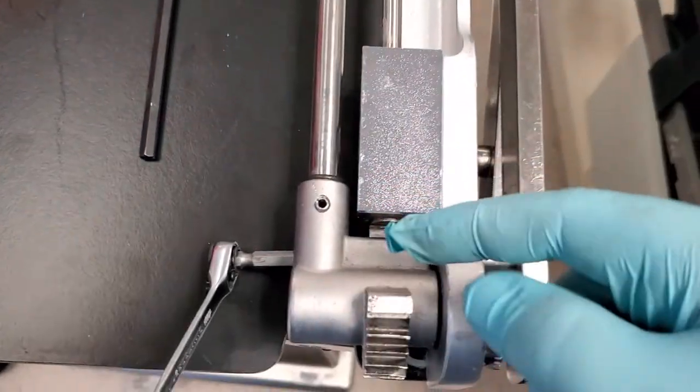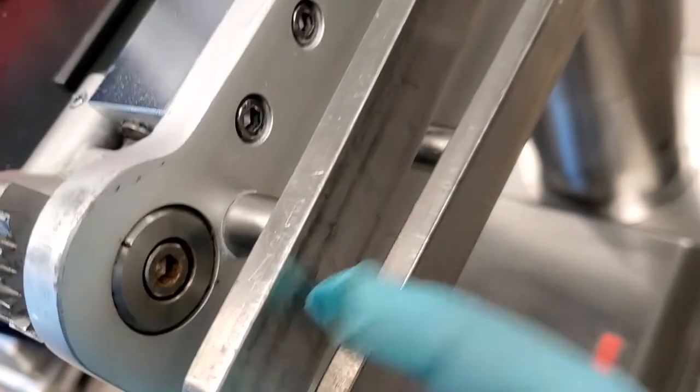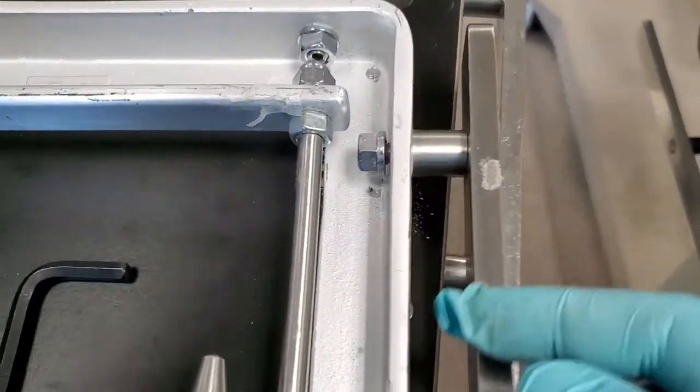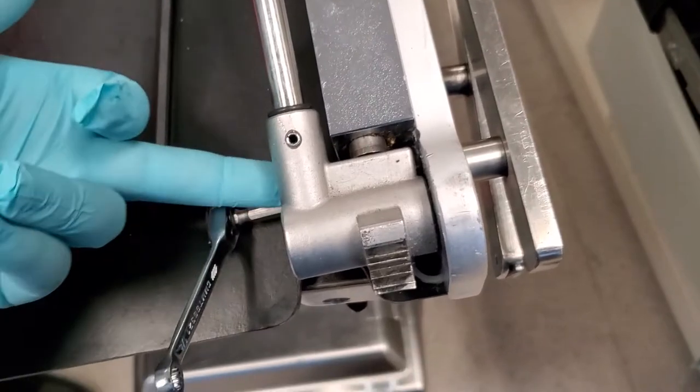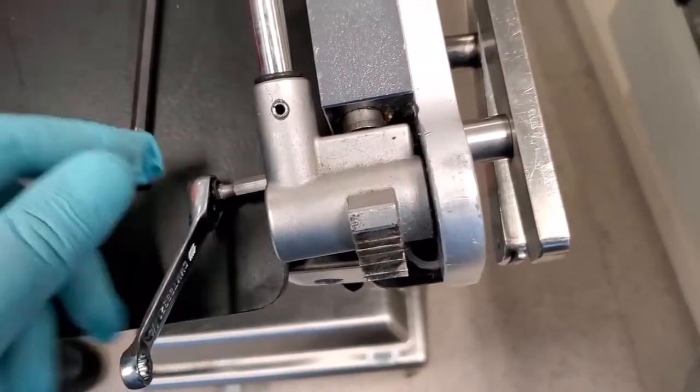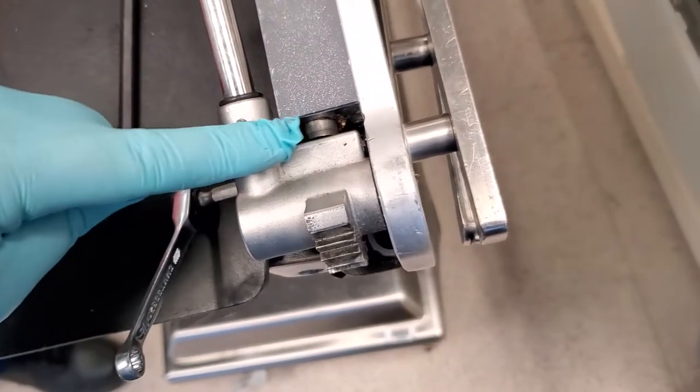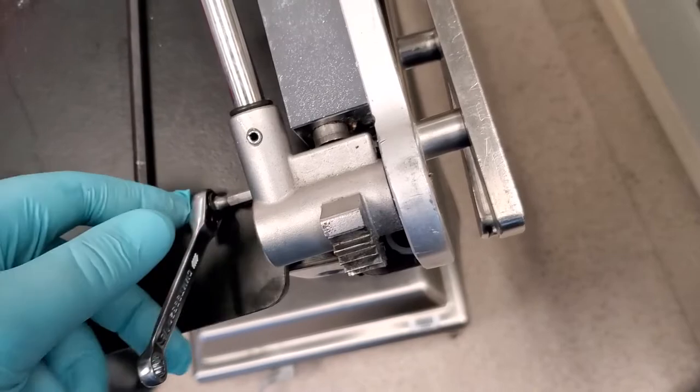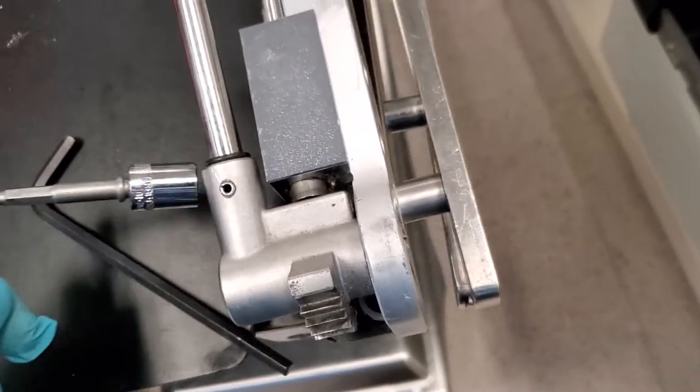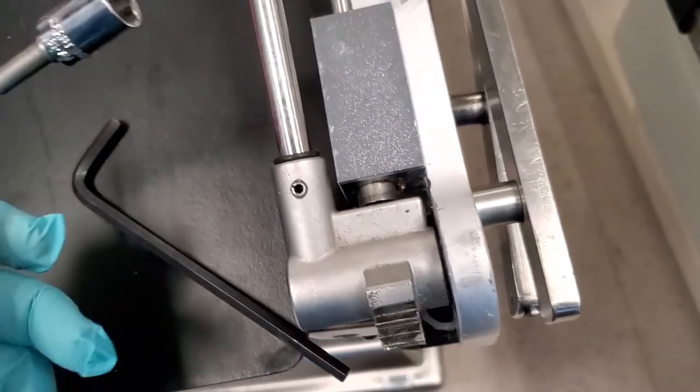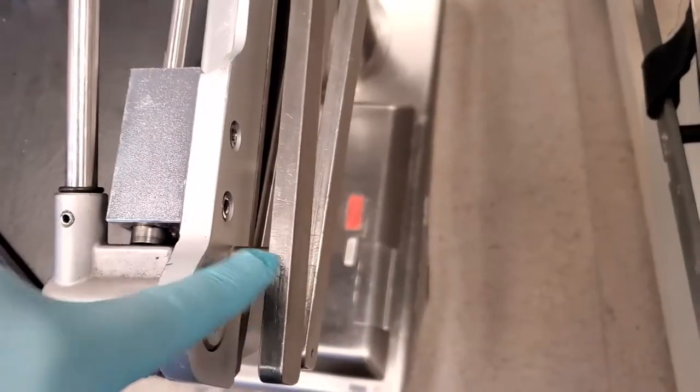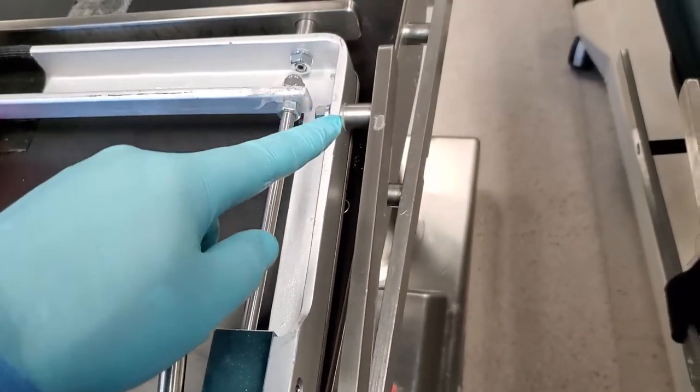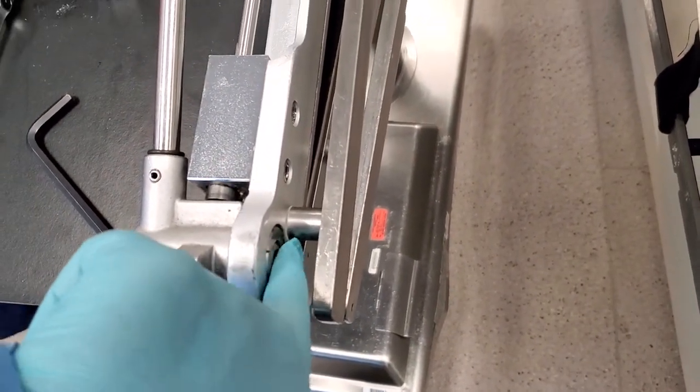Okay, in order to get this guy out proper, because it's intercepted by this bar, of course it is. Why wouldn't it be? So this can be pulled. We can get at this one. That's not a problem. This one down here would normally be a challenge, except you can see that I rotated this guy all the way down, so that I can fit a socket under the groove right here, in between the spur gear and between this casting. So I can fit the socket in, you can see now I can tighten it down. Rotate this guy all the way back and you can fit it underneath it and get to the fastener for this rail. Drop this fastener right here, loosen that guy up, the rail will spin out of the way and now you have full open access to that bolt.